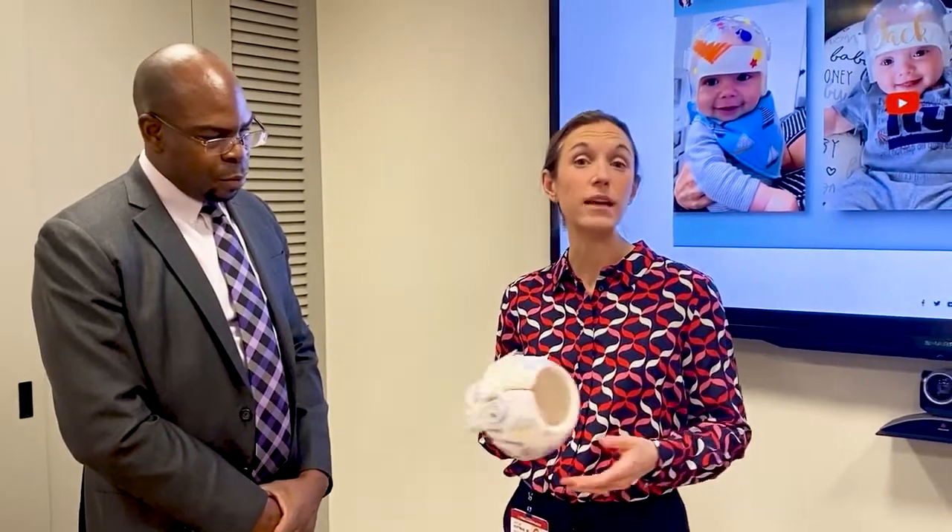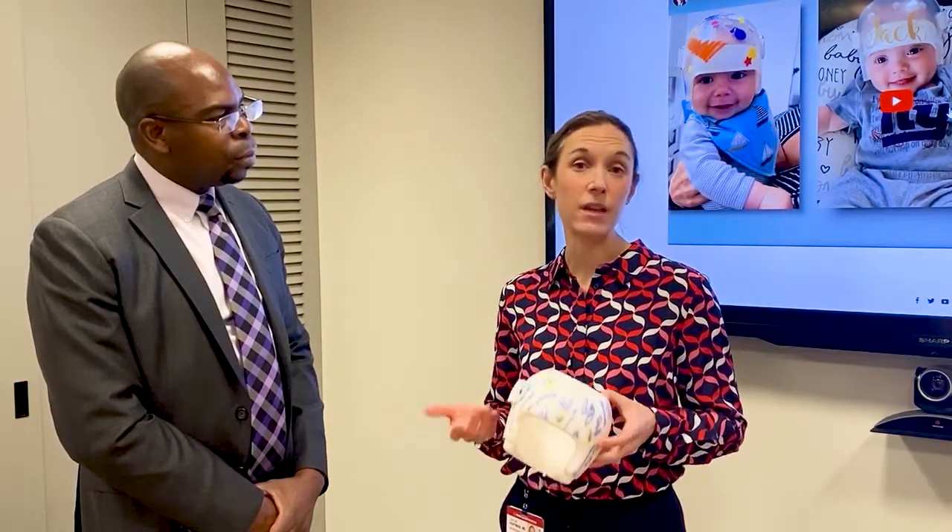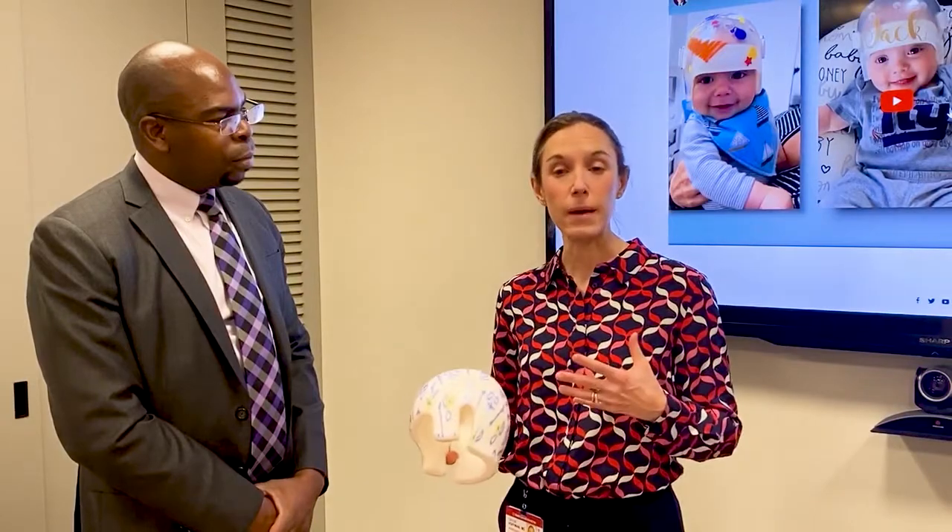These are typically very well tolerated. This is an extremely light material, and children adjust to it very quickly. Once the desired cosmetic outcome has been achieved, the helmet is removed — again, typically a few months after surgery, usually not extending past the first year.